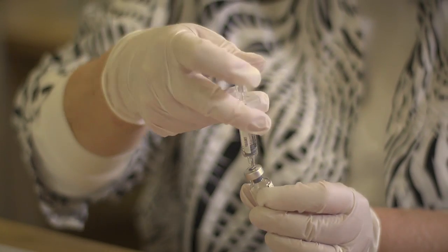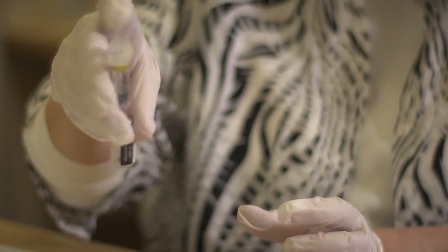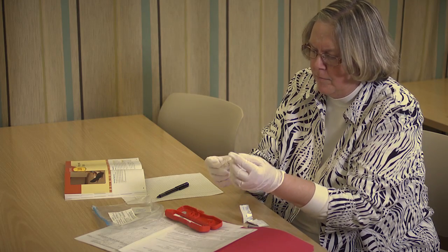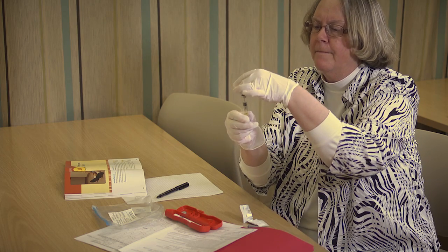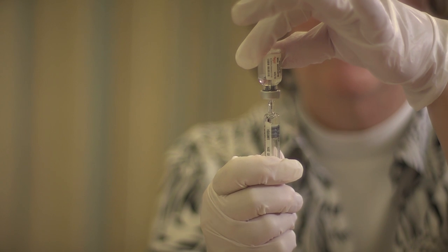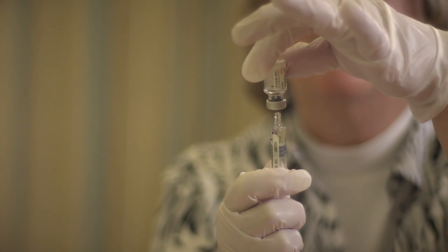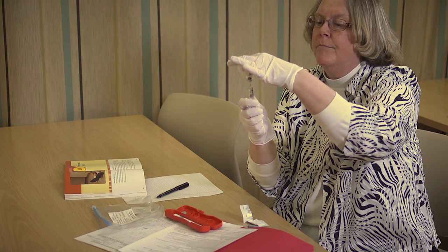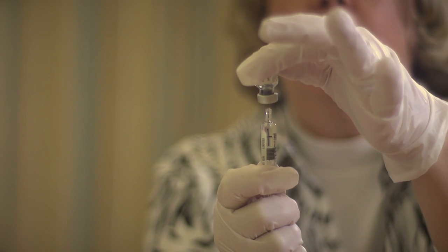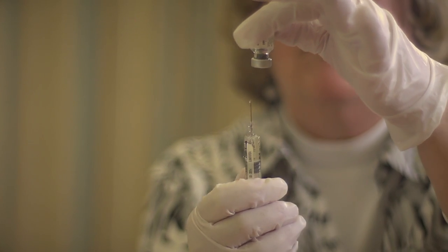Gently swirl the vial with the syringe still in the vial until the solution is clear. This takes about 10 to 15 seconds. Turn the vial upside down, being sure that the needle does not fall out of the vial. Pull the solution into the syringe by pulling back on the plunger as you withdraw the ordered amount of glucagon solution. If present, remove air bubbles by tapping on the outside of the syringe and expelling the air, or by pushing the dose back into the vial and pulling back on the plunger again.